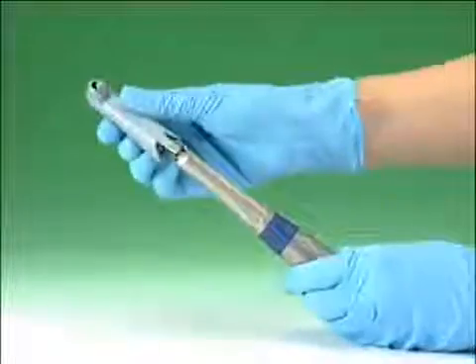We conducted experiments with a high number of patients for the choice of the central incisor colour, using conventional colour chart systems, the Sopro 717 Sopro shade concept and the latest spectrophotometers, recent spectrophotometers of the latest generation. The matching rate is of more than 66%, which is a good result for this kind of test.